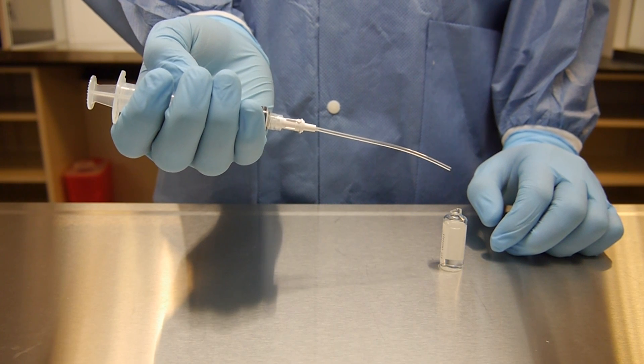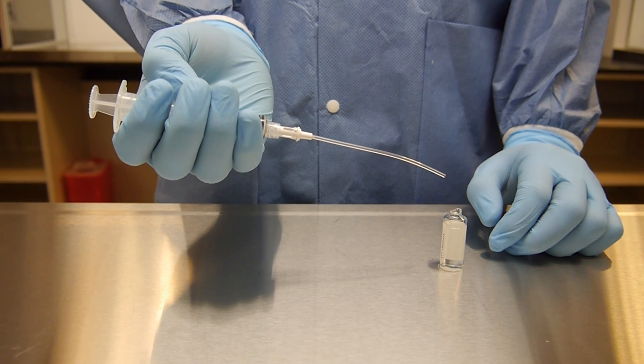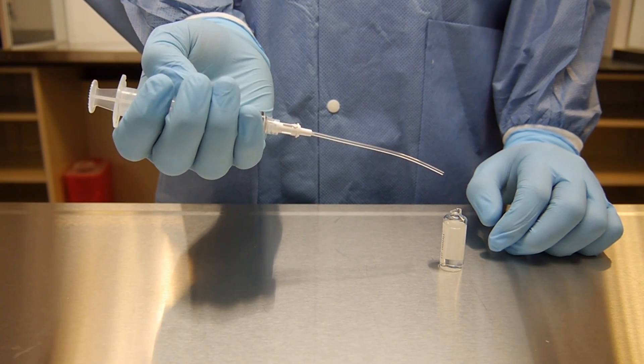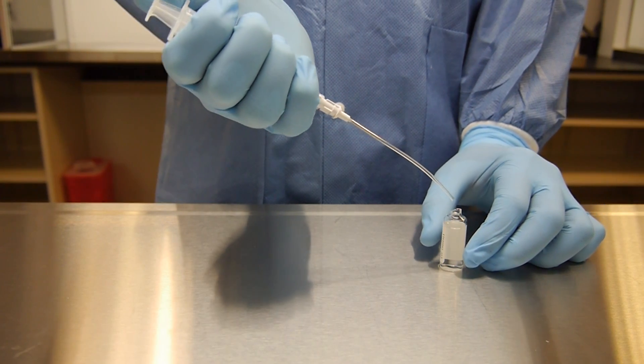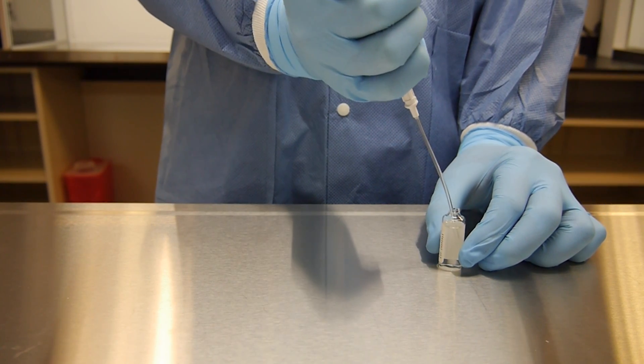Since an ampule is an open system, no air will need to be drawn into the syringe and injected into the ampule. Insert the filter straw into the ampule opening, careful not to touch the outer edges of the ampule opening.